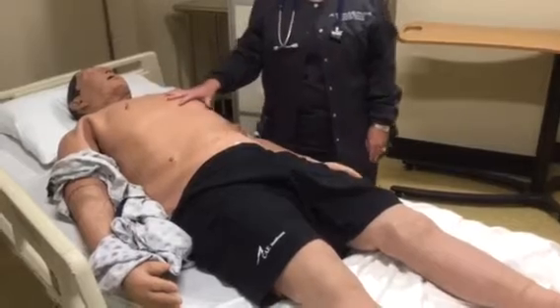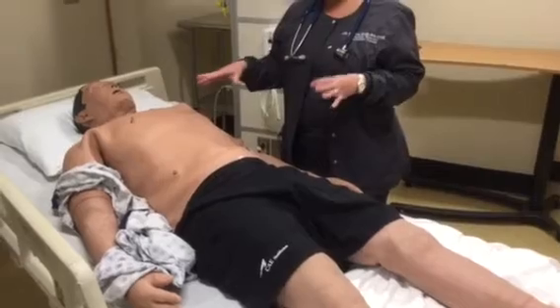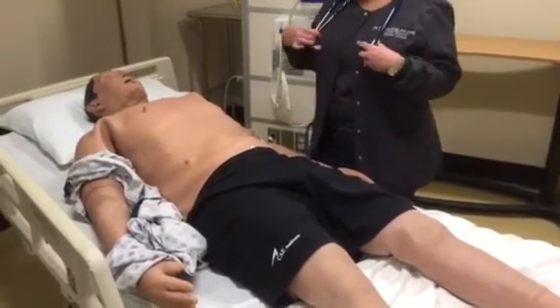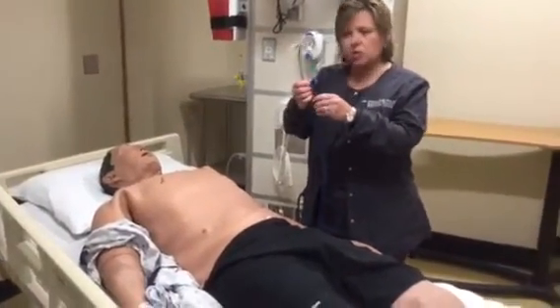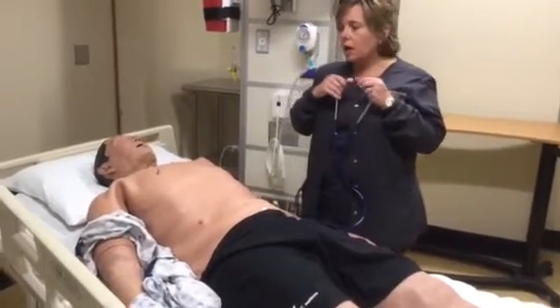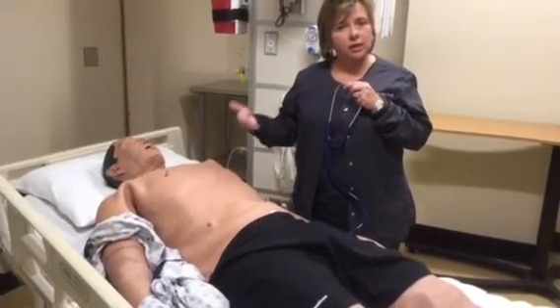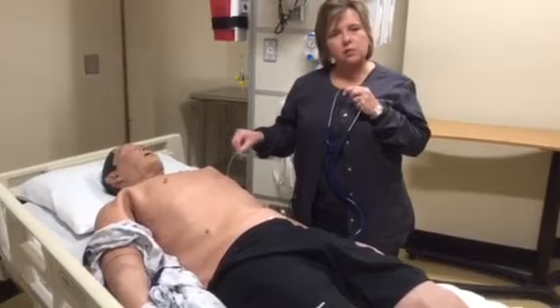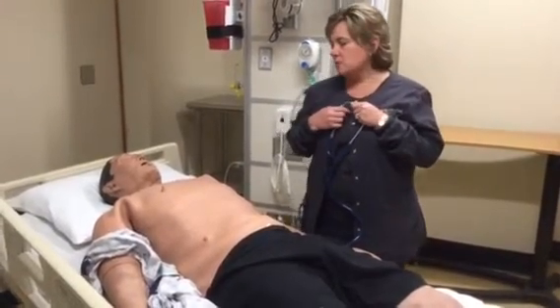On iStan, you have the ability to listen to heart sounds, lung sounds, and bowel sounds. All of your sounds are heard through speakers, so that's very different than on a human. If you're not over the correct speaker, then you're not going to hear the sound. So I'm going to show you the best places to listen, and these are pretty much universal with Lucina, iStan, HPS, and the OR. They're all going to be in about the same area. The key is if you're not hearing a sound, you're hearing the movement of the mannequin. So you'll want to move your stethoscope around and make sure that you're over that speaker.